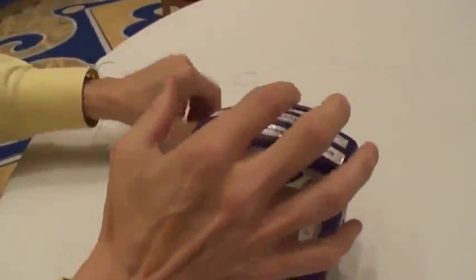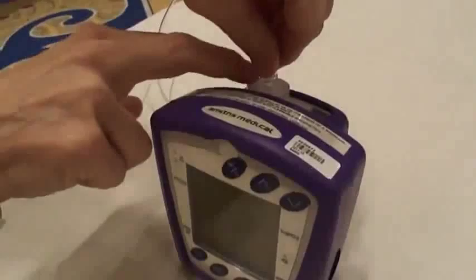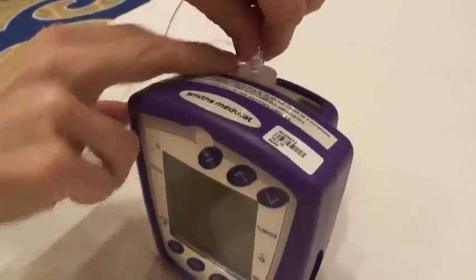Then you're going to have your End-tidal CO2 tubing or nasal cannula as we refer to it. Basically it just locks right onto the back.